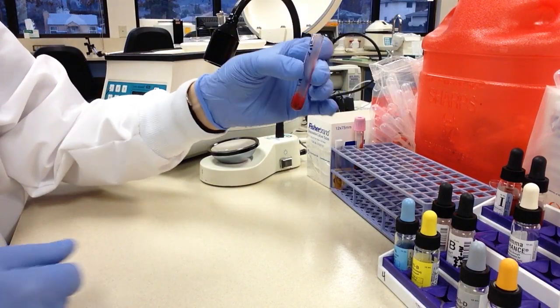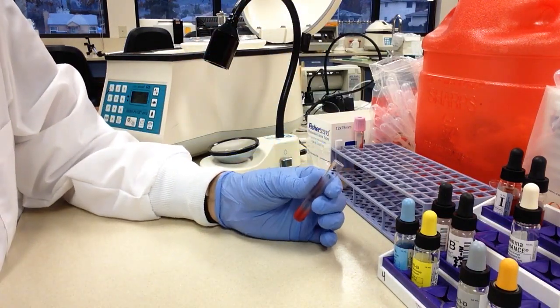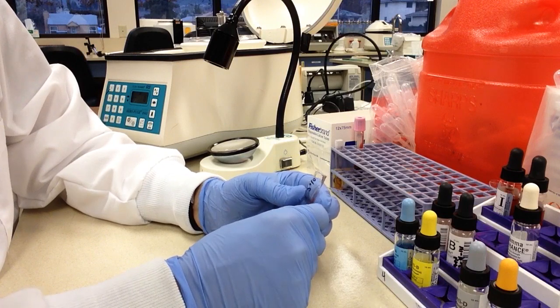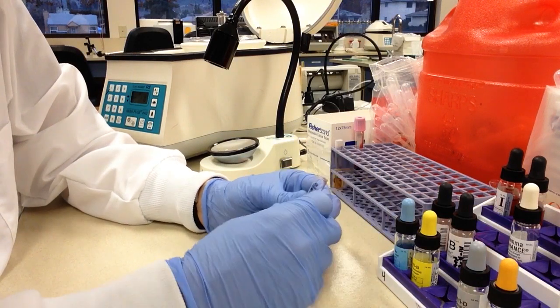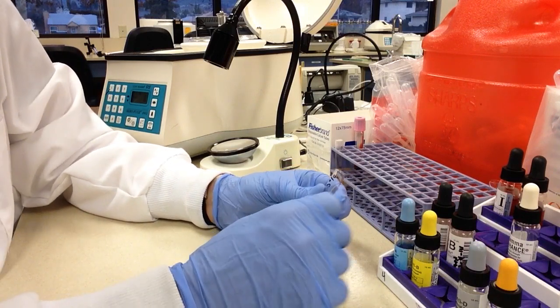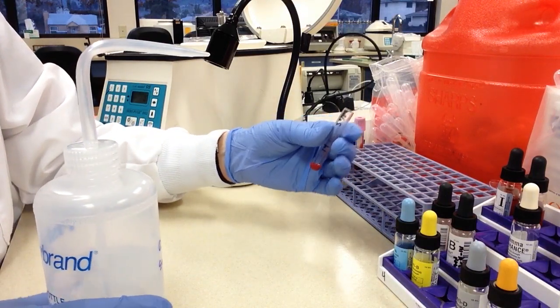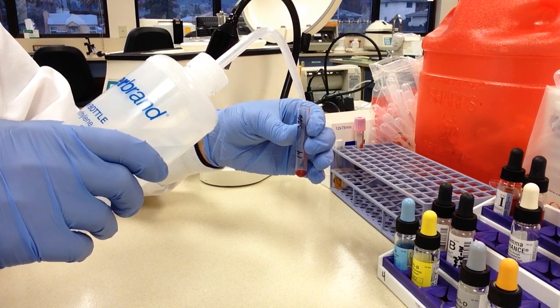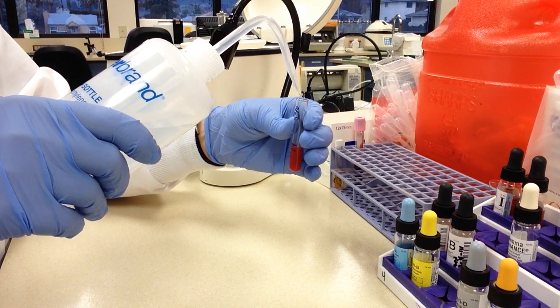Okay, so let's go ahead and get it mixed up. Get that off the bottom. All right, now comes the tricky part. We have to put in the right amount of saline to make a 3% suspension. Now, I think most places would call it a 2% to 5% suspension. We just happen to call it a 3% suspension. But it's in that ballpark. So for this much blood, three drops, I'm going to start with filling the tube halfway with saline.